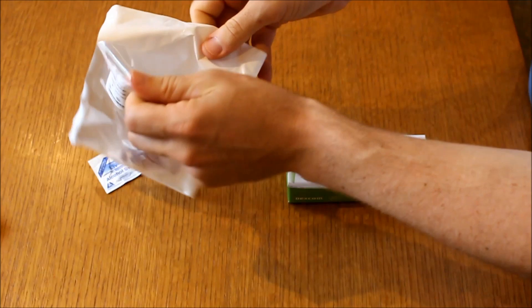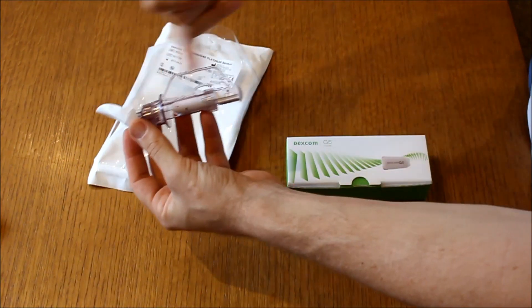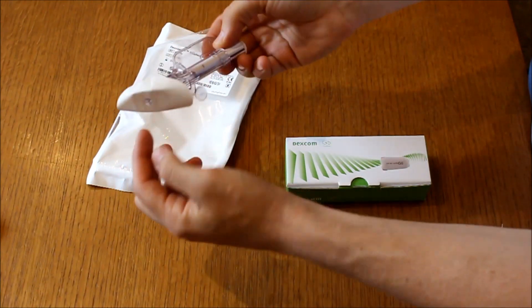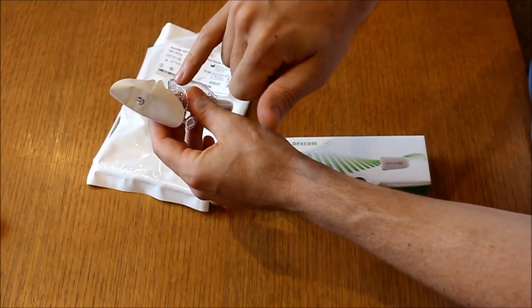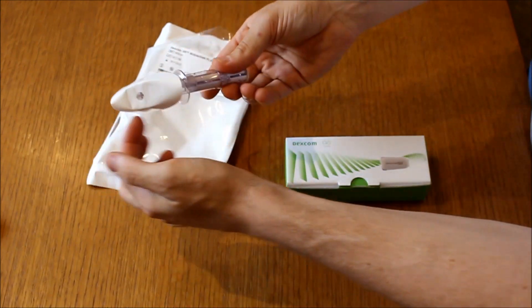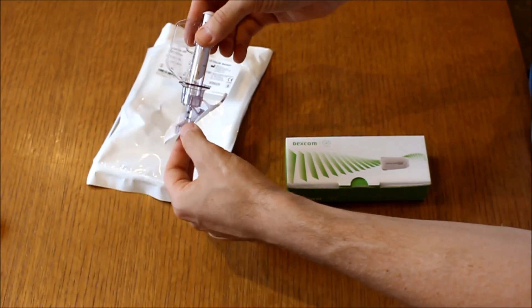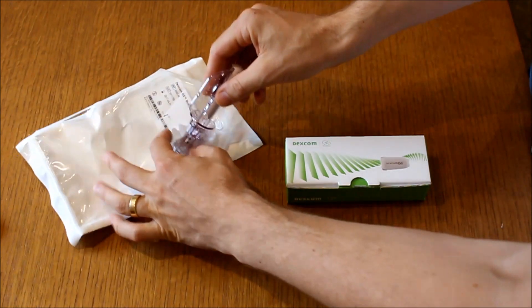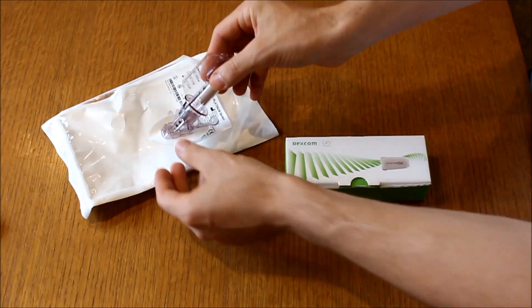To give you a closer look at the sensor — all of this area here is just there to insert the sensor under your skin, and it comes out this little hole here when we do insert it. The white section here forms part of the dressing that you stick to your skin. And then once it's all inserted, this whole section on the top comes off and just leaves the dressing here with the small little plastic frame around the bottom.